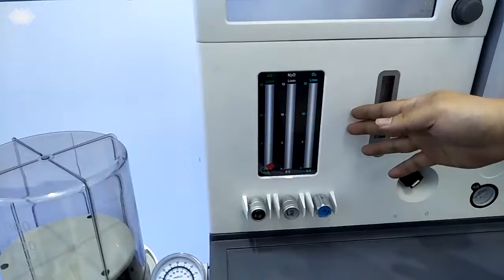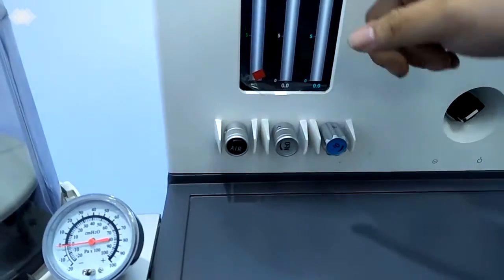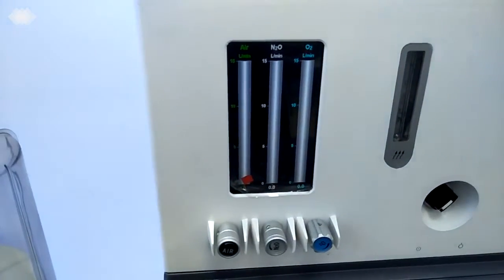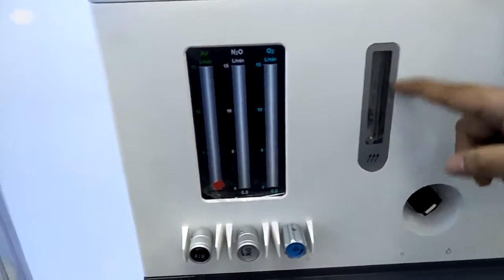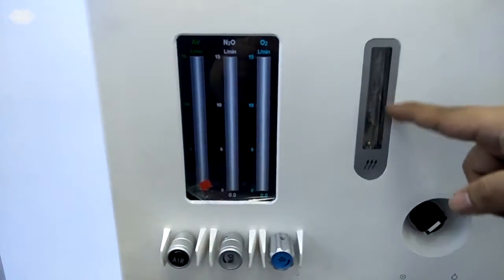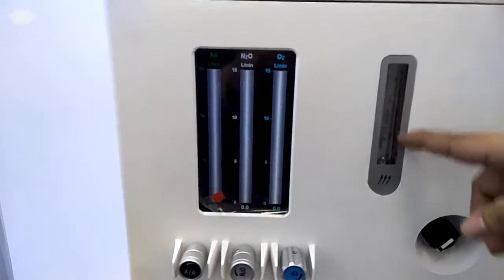Here is the flow meter. We are using the digital flow meter, and one for each gas. We have totally 3 gases, the air, nitrous oxide, and oxygen. And you can see for each of the gases, the digital flow meter can show from 0 to 15 liters per minute. It's already enough range for different kinds of patient. And here we also have a manual flow meter. This one means even sometimes the digital one cannot work, we can still check the flow here. And this one will be the total flow. That means if the air flow we choose is 3 and the oxygen flow we choose is 2, then here will be shown 5.